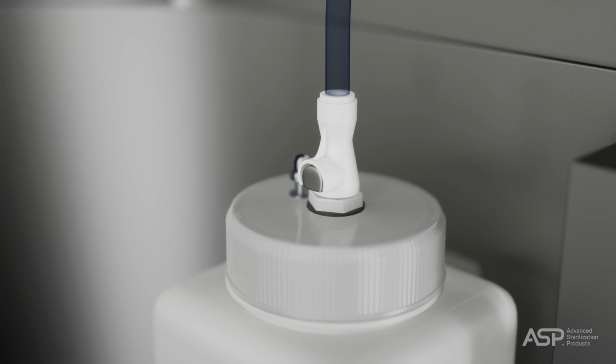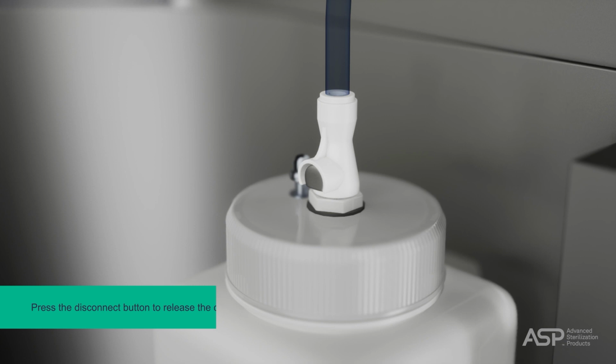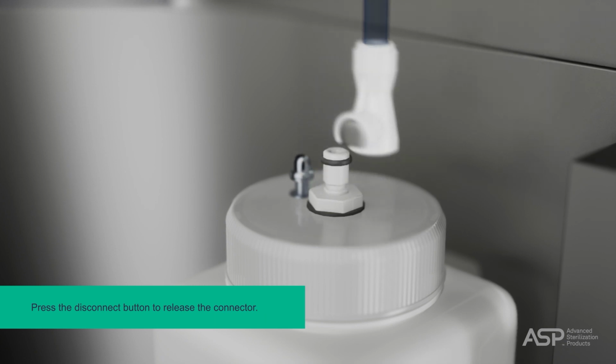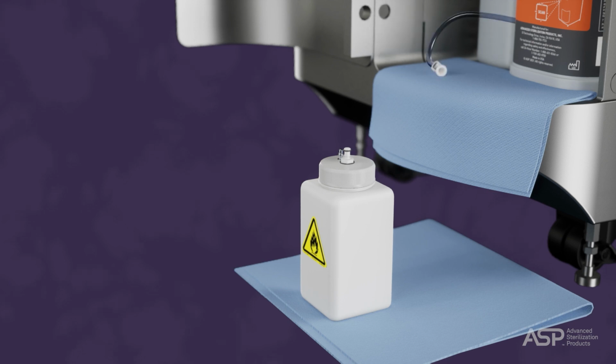The tube attached to the alcohol bottle cap has a disconnect button on the connector. Press the button to release the connector and lift the tube off the cap. Then set the tube on a clean towel. Unscrew the cap of the alcohol bottle and set the cap on a clean towel.